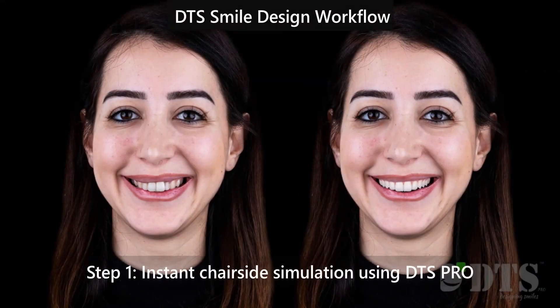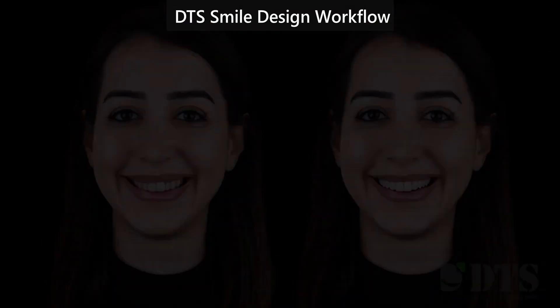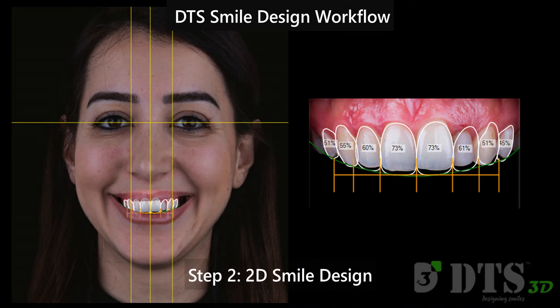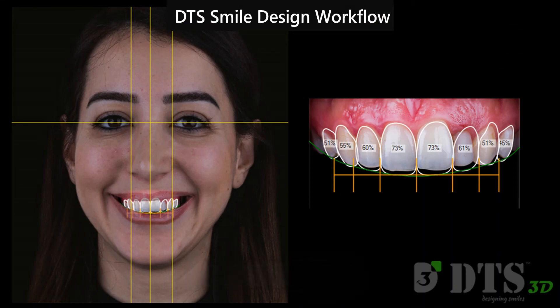Create an instant chair-side simulation within minutes. The 2D designs can be exported to the lab, or can be used for 3D mock-up design.